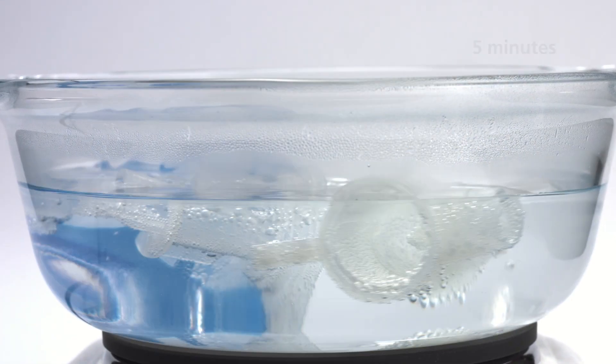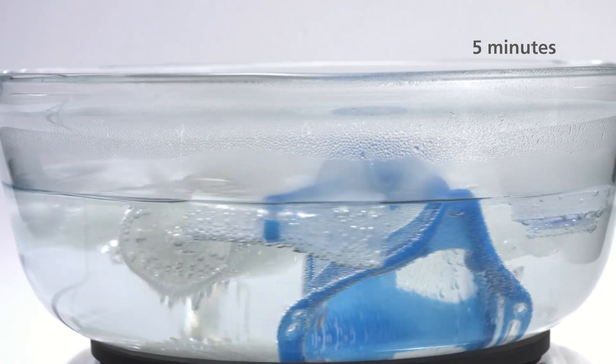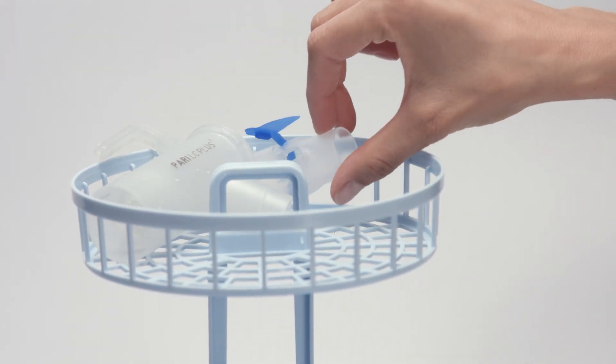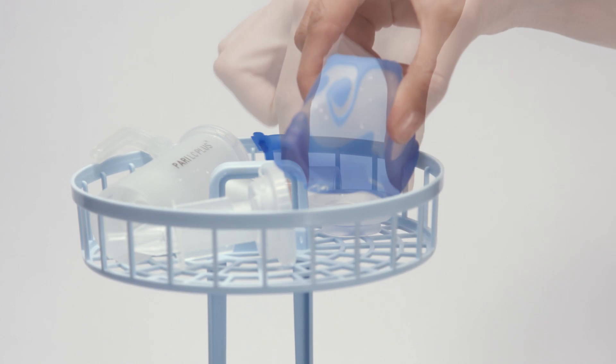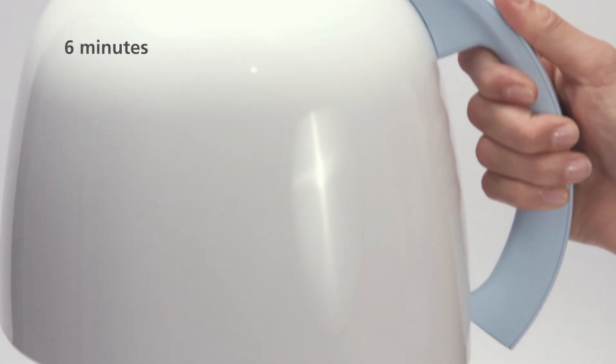Disinfect the nebulizer once a day for five minutes in boiling water, or for at least six minutes in a standard commercial disinfector, such as one designed for baby bottles.